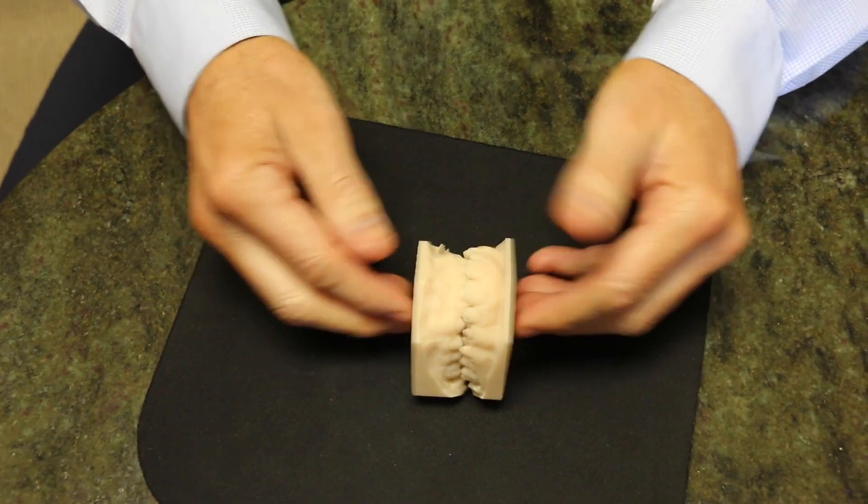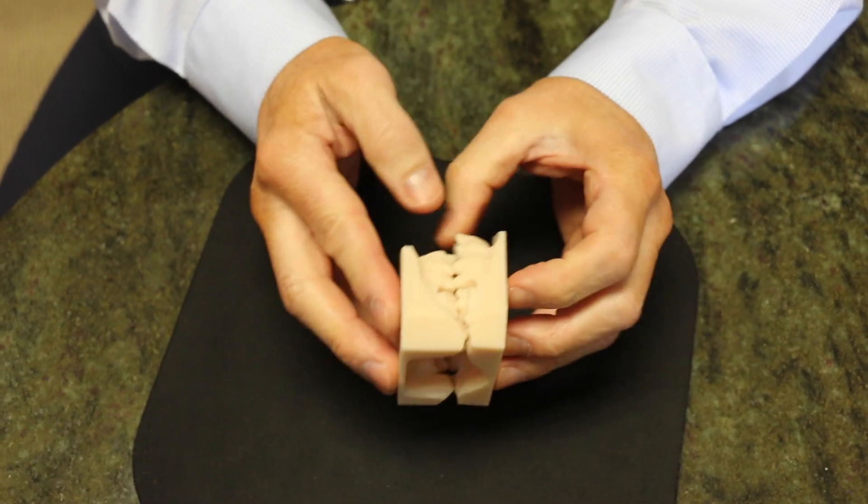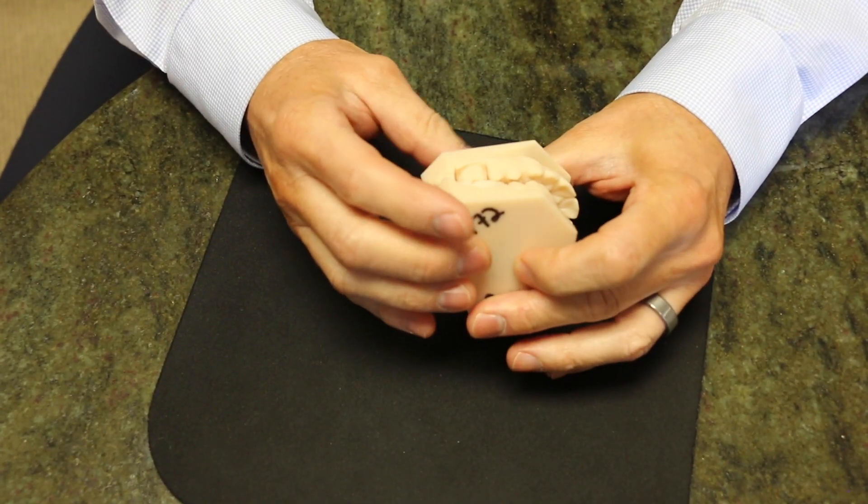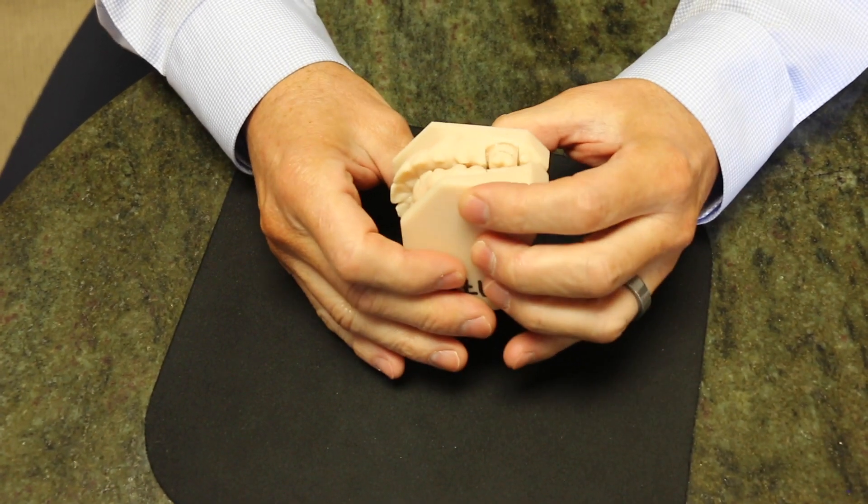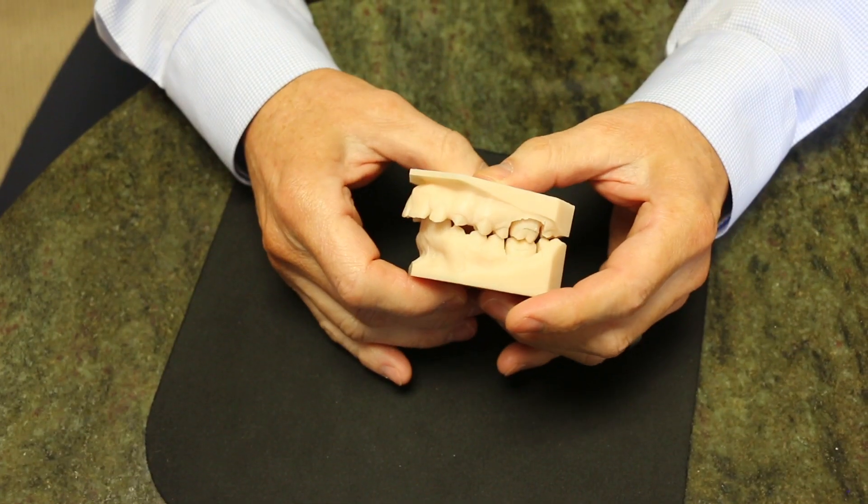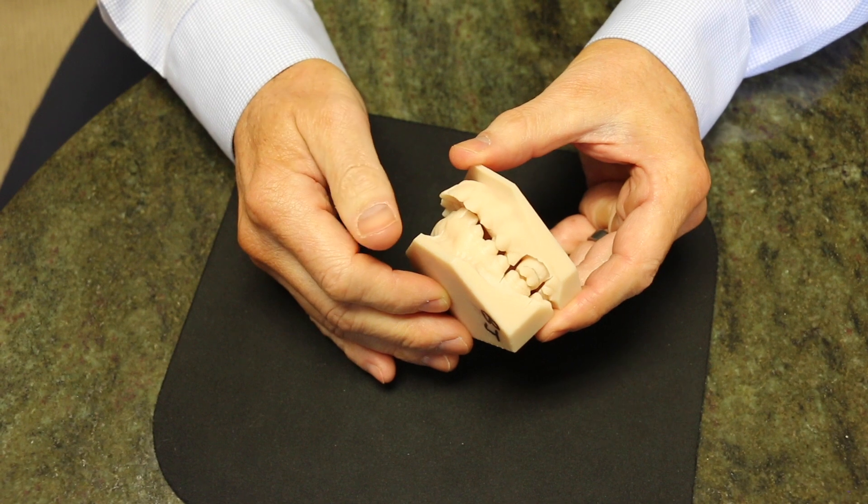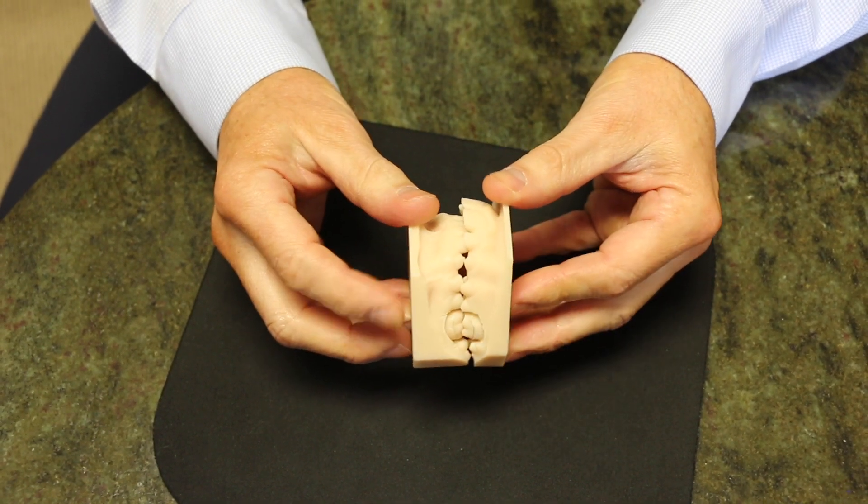Well not too long ago we used to use a special device called a headgear that some of you may be aware of. I wore one when I was a kid and I actually don't use those anymore.